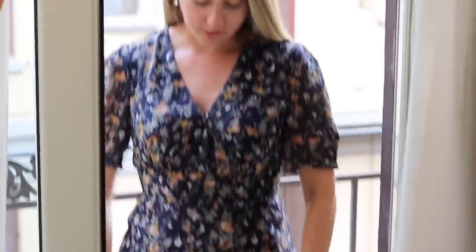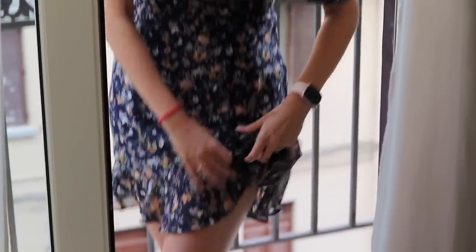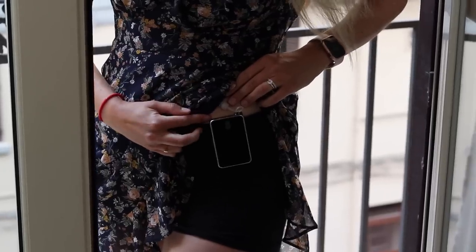I'm here in Palermo, Sicily, wearing a casual, very free-flowing dress. My pump is clipped to my waistline — I'm wearing Lululemon booty shorts underneath, pump clipped to the waistband of the shorts, and then I put my dress over the top and you can't even see it.